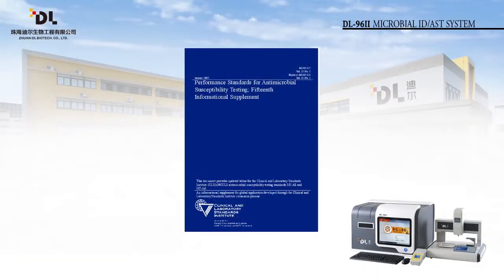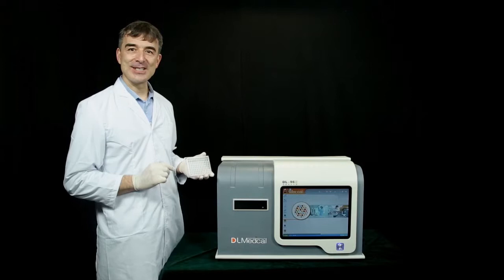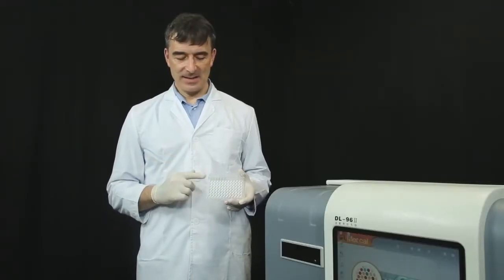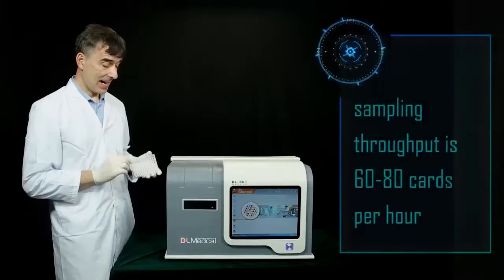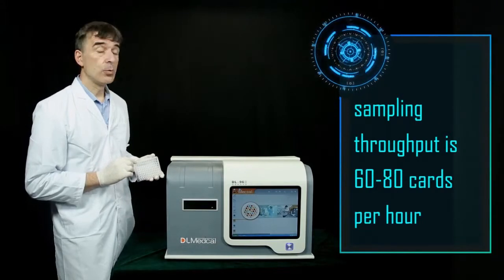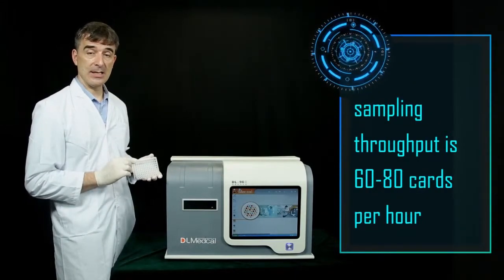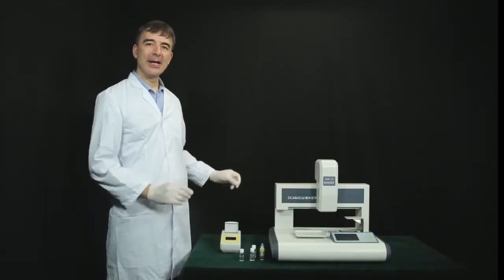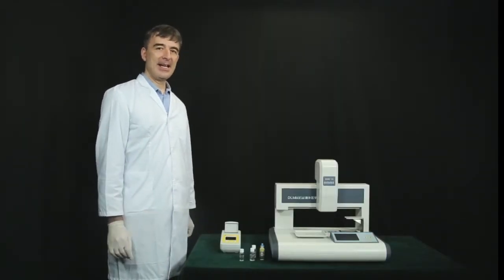Drug-sensitive test has a variety of antibiotics. Sensitivity analysis of antibiotics complies with the latest Clinical and Laboratory Standards Institute regulation. A fully automated sampling device can be equipped so as to reduce workload. It can prevent errors caused by manual sampling and guarantee biological safety. Sampling throughput is 60 to 80 cards per hour. Standard operation procedure provides optimum quality assurance. User-friendly interface with reliable and rapid analysis.